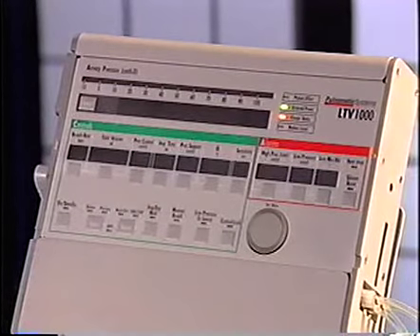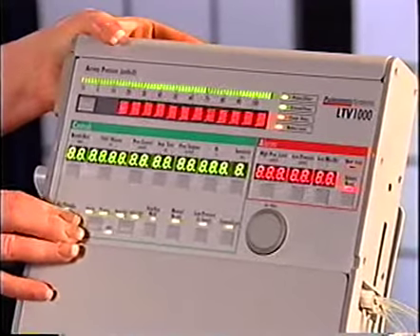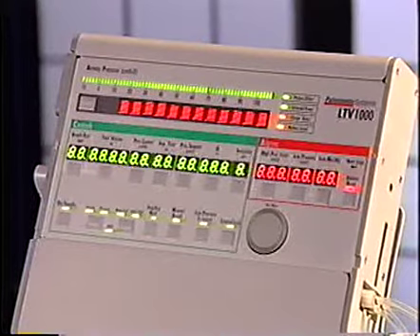The LTV's front panel is very easy to use. We'll start in the lower left-hand corner of the LTV control panel and work our way across and then up. This is the on standby button. When the ventilator is in standby with external power provided, the on standby LED will be off, but the internal battery will be charging. Push the button to turn the ventilator on. The on standby LED will light up.